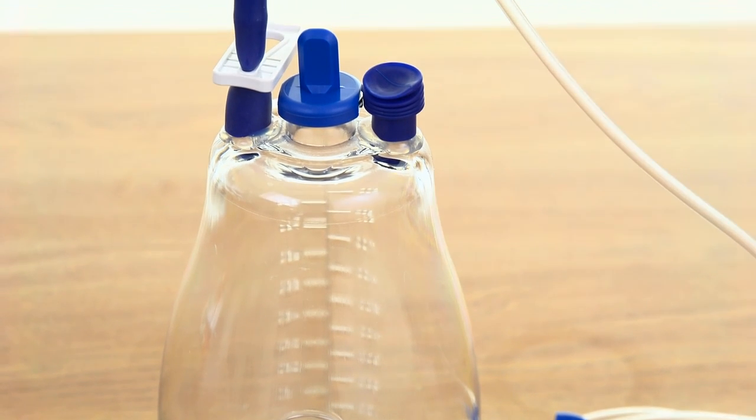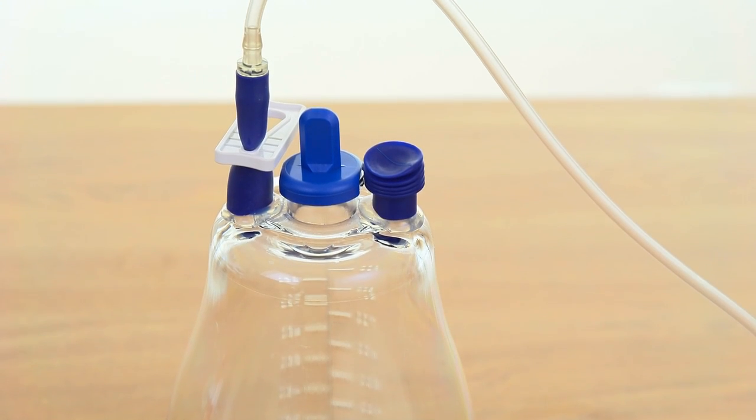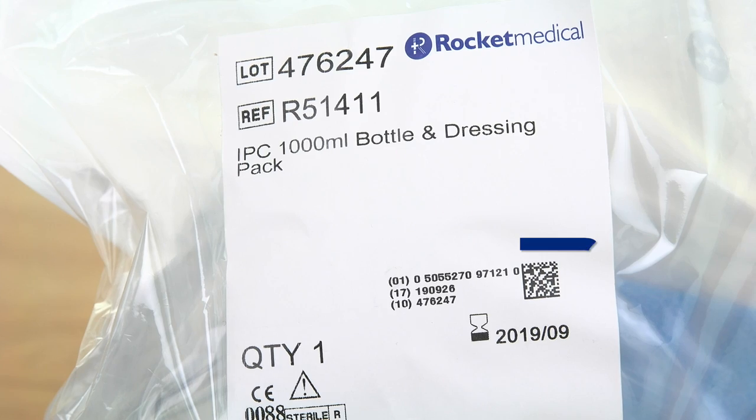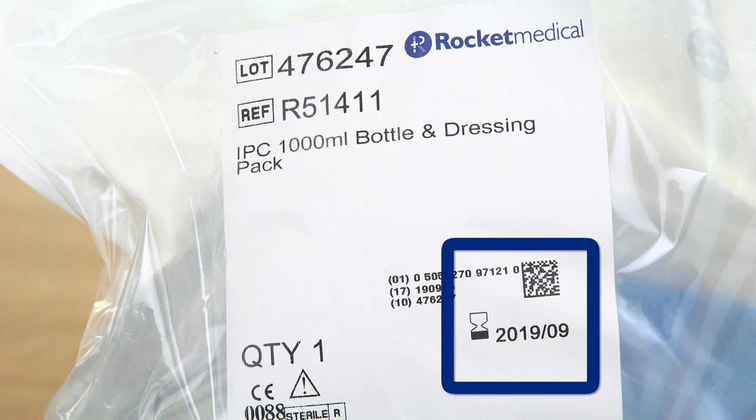Due to the natural dissipation of vacuum over time, the vacuum level of the bottle will reduce over the lifetime of the device, which is indicated by the expiration date on the package.